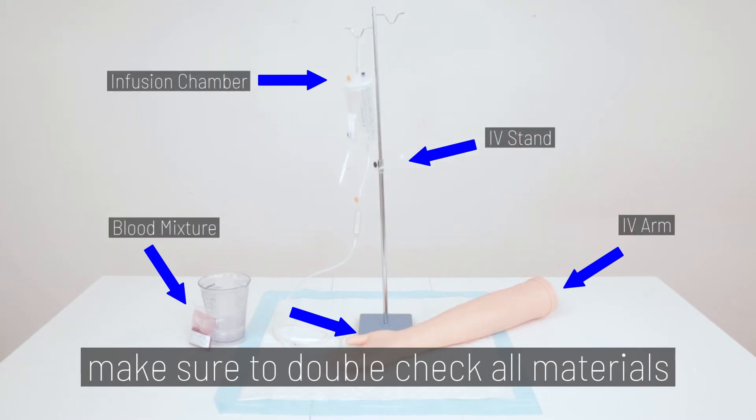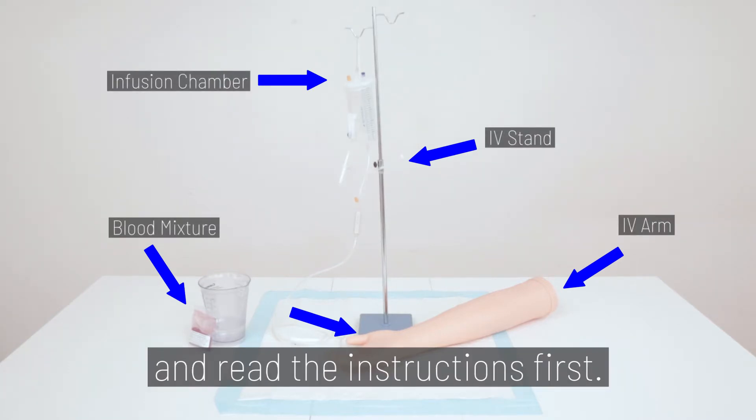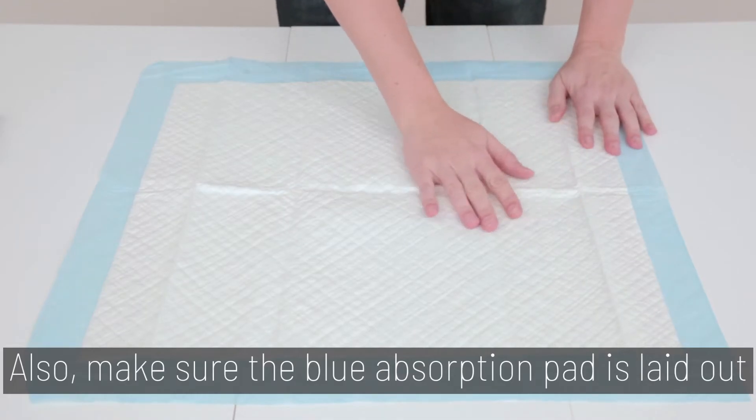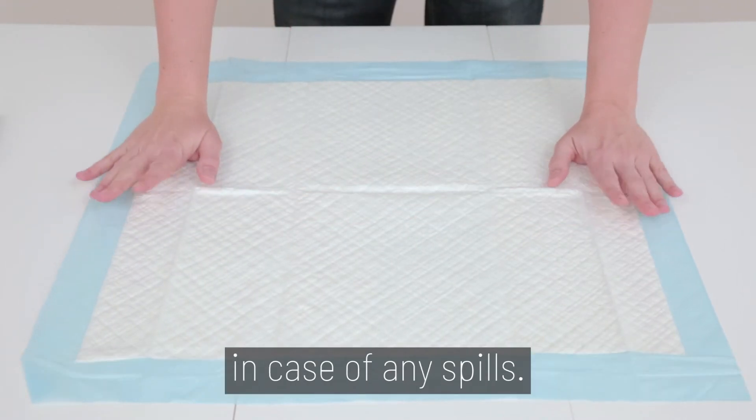Before we begin, make sure you double check all materials and read the instructions first. Also, make sure the blue absorption pad is laid out in case of any spills.